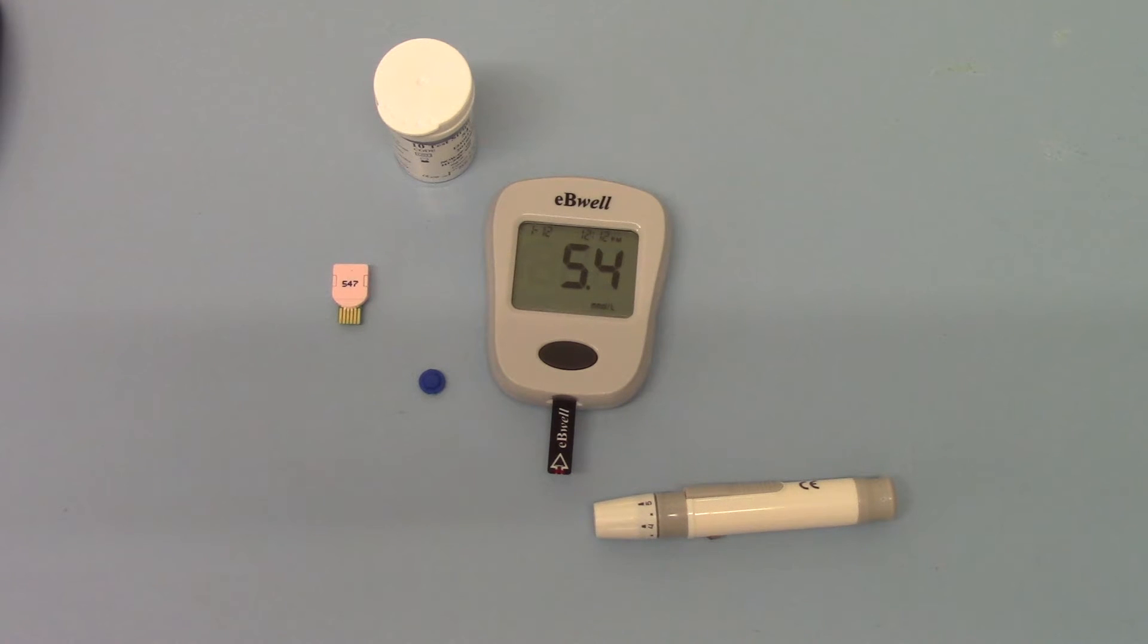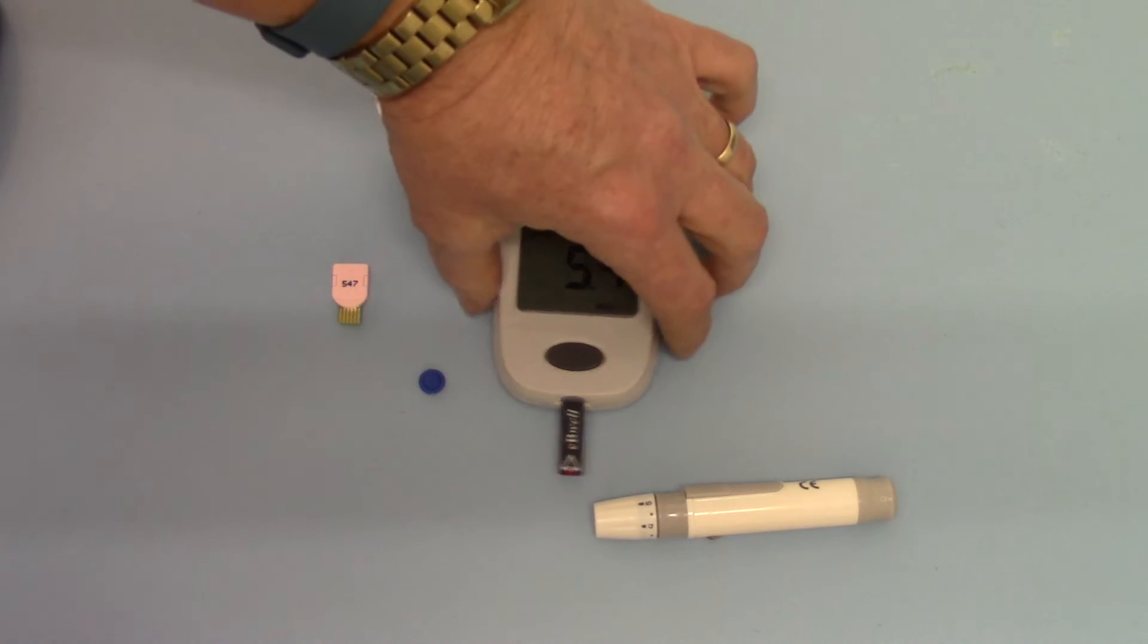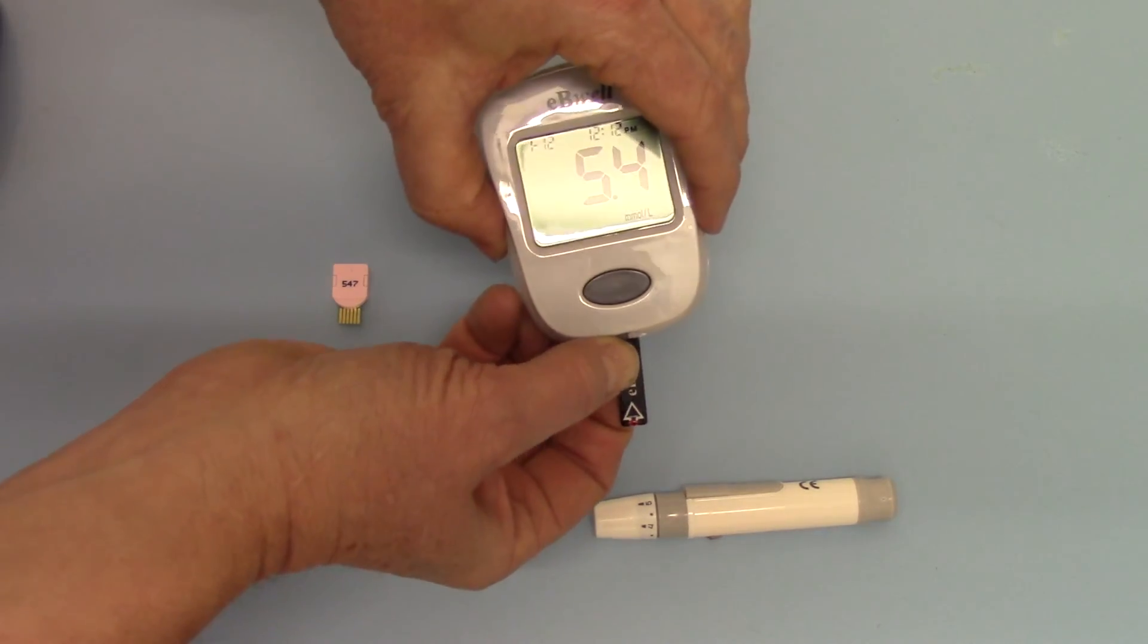Couldn't be simpler, couldn't be easier, couldn't be quicker. Very nice and easy to use. Now we're just going to show you how to remove the test strip.